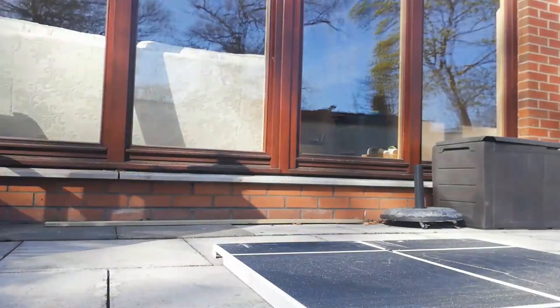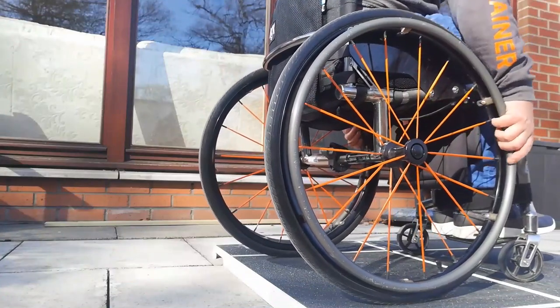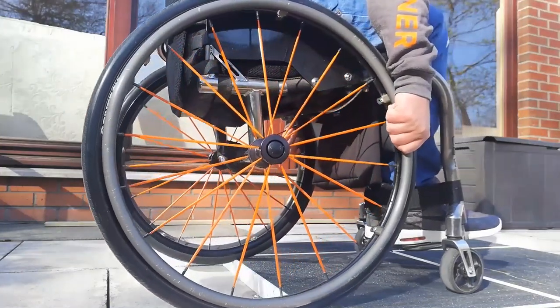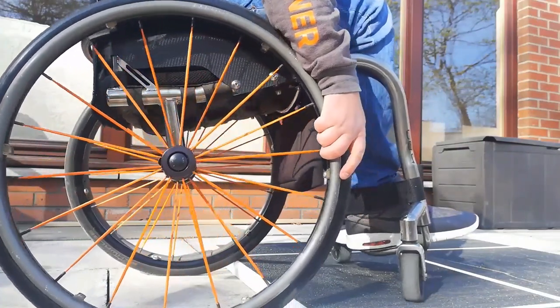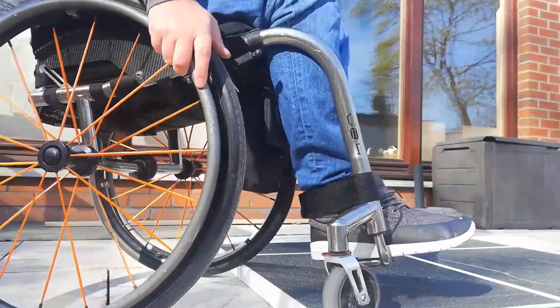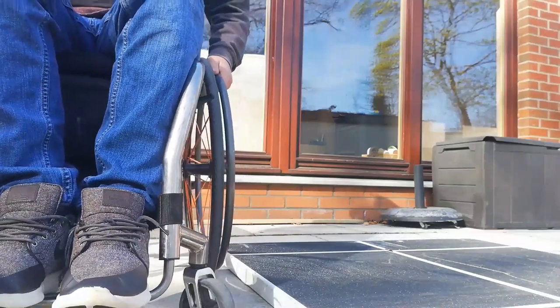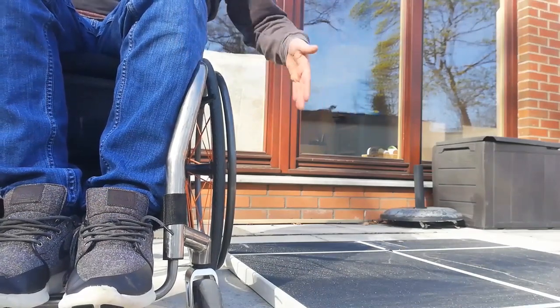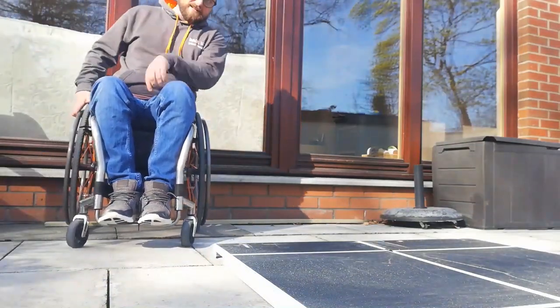So the second skill — similarly, we're coming to the very end. This time, keeping that weight forward same as before, we want to get to the point where we're off the curb. And then from there, it's turning against the curb, keeping that weight forward all the time, turning 90 degrees, and then sliding the curb. And as you can see, I'm still very, very tight to the curb here — I've not rolled away in this direction. I'm still nice and tight. That's the second skill.